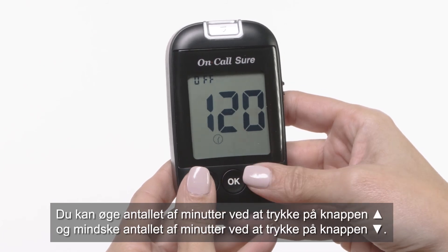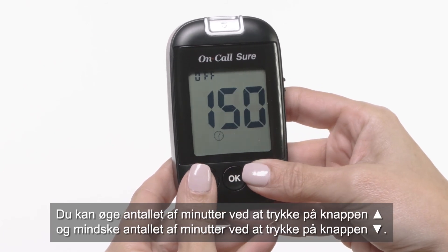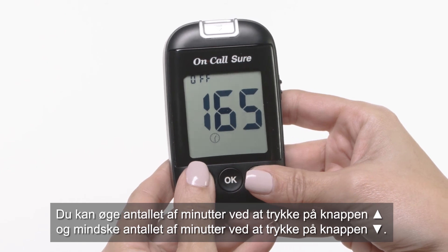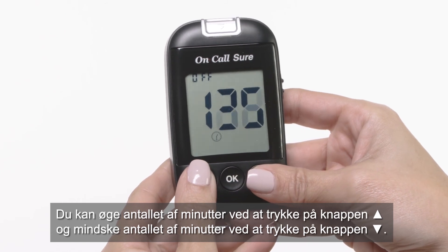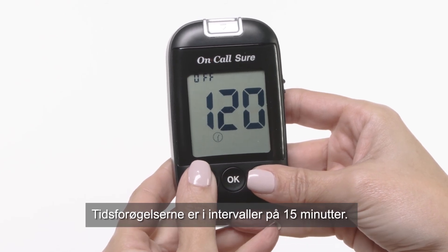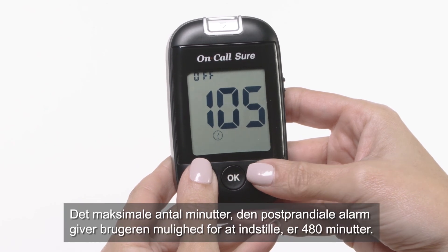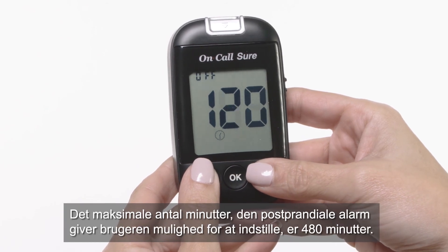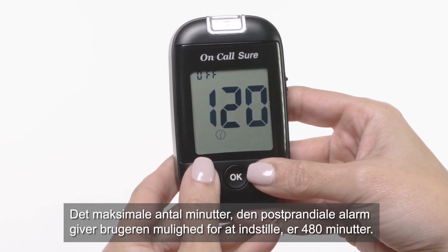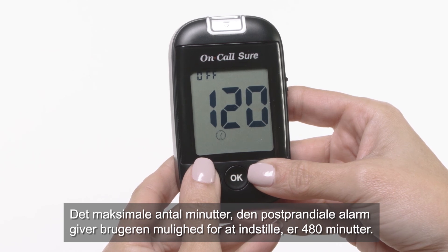You can increase the number of minutes by pressing the up button and decrease the number of minutes by pressing the down button. The time increments are in intervals of 15 minutes. The maximum number of minutes that the post-prandial alarm allows the user to set up are 480 minutes.